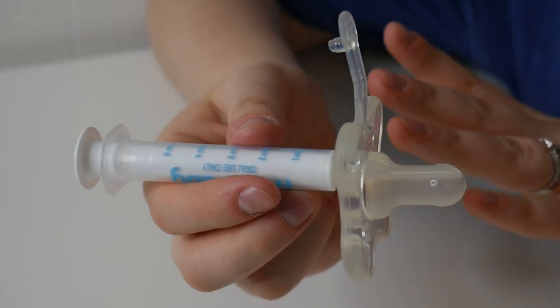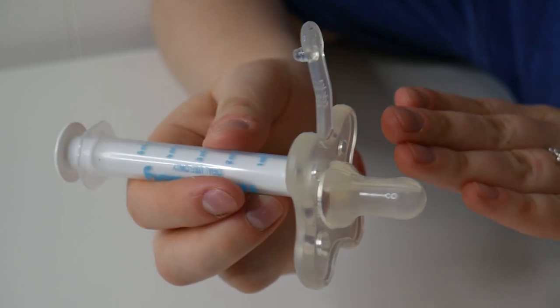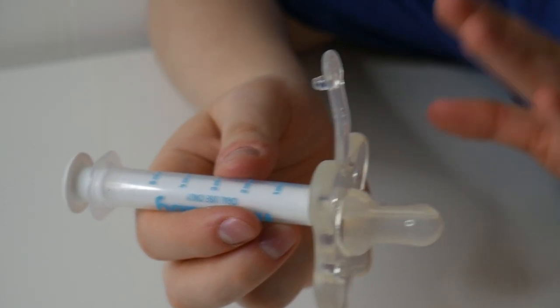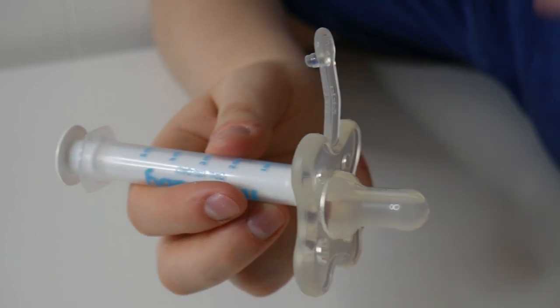Overall, this setup is very convenient to have on hand. I really like that it can help prevent any messes, but also ensure that your little one is getting the correct dosage of medicine.